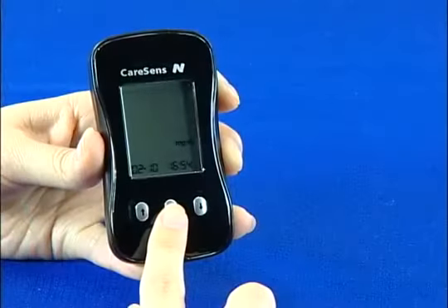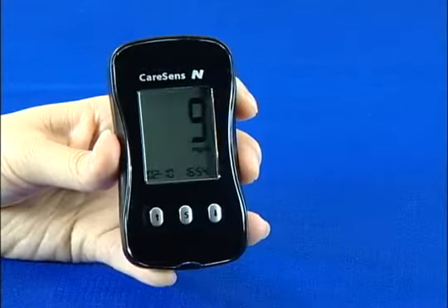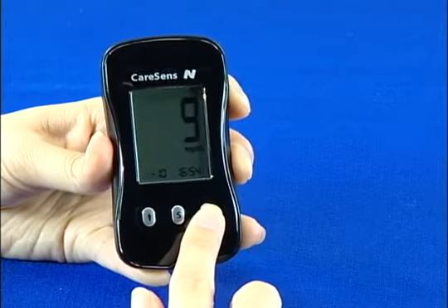After setting the year, go to the month setting by pushing the S button. When the month blinks, use the arrow buttons to change it. After setting the correct month, press the S button to set the day.